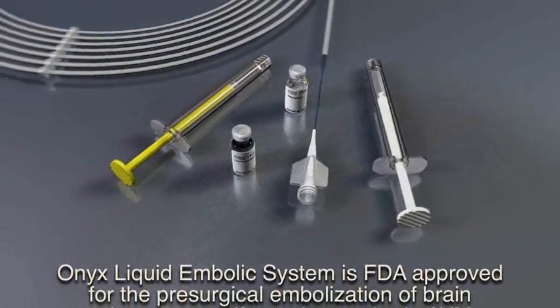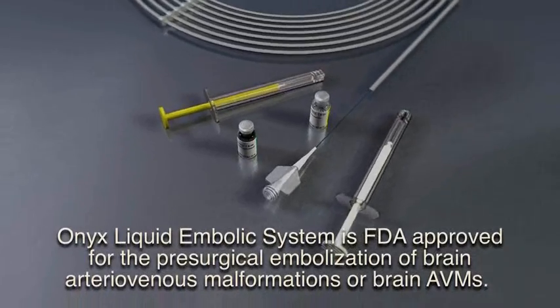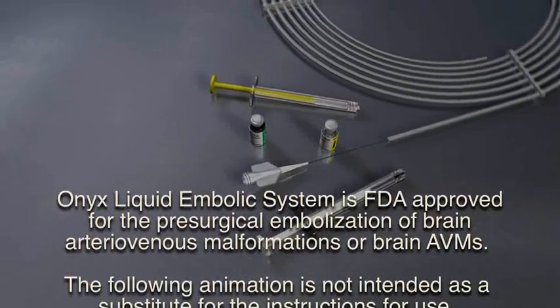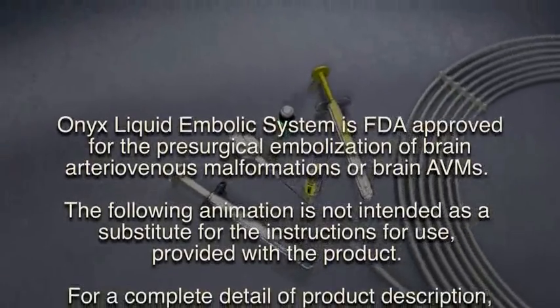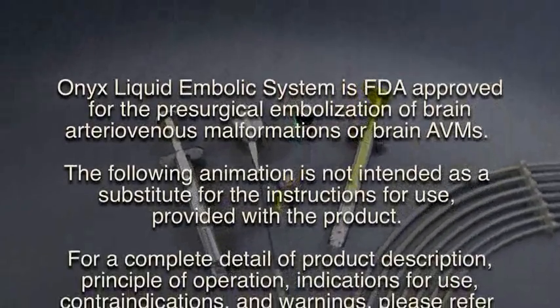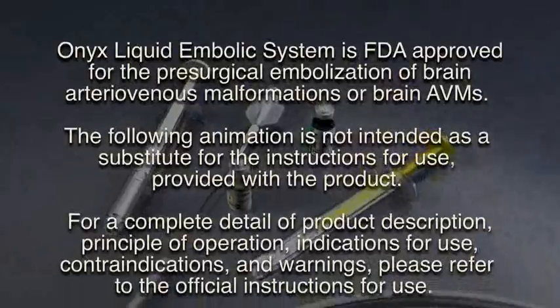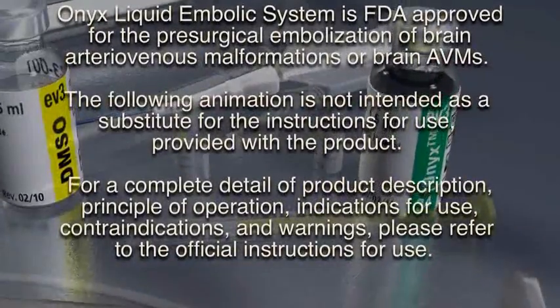Onyx liquid embolic system is FDA approved for the presurgical embolization of brain arteriovenous malformations or brain AVMs. The following animation is not intended as a substitute for the instructions for use provided with the product.